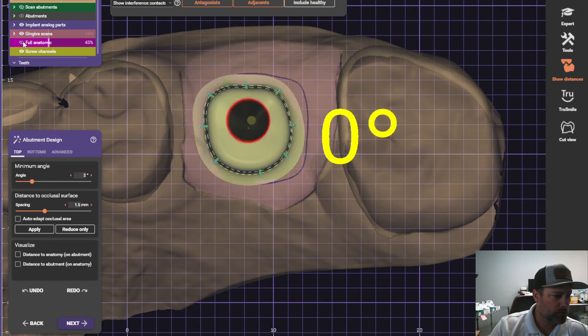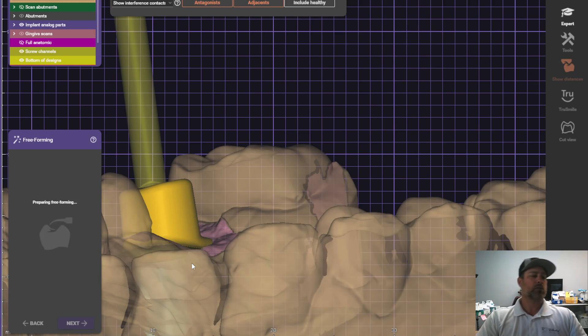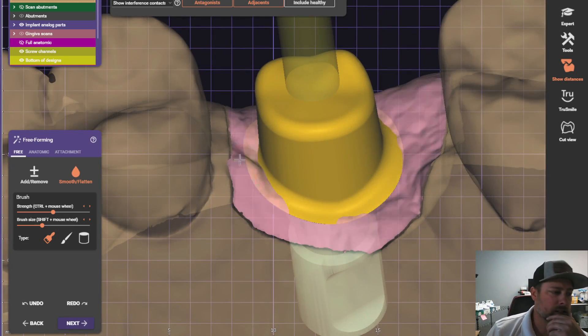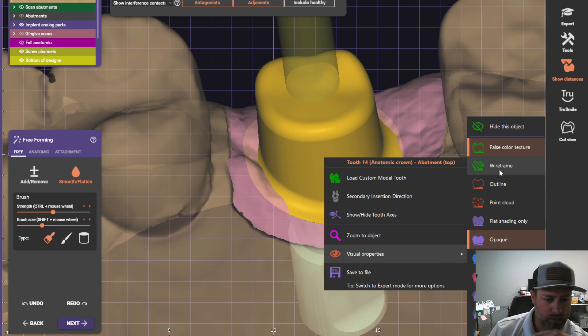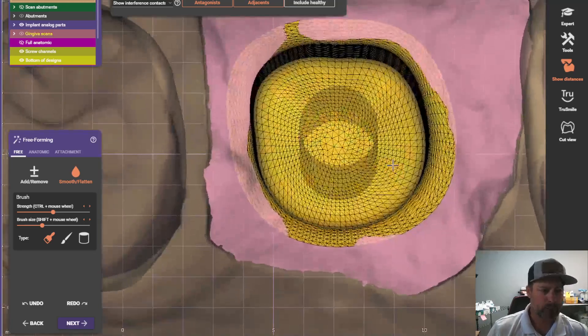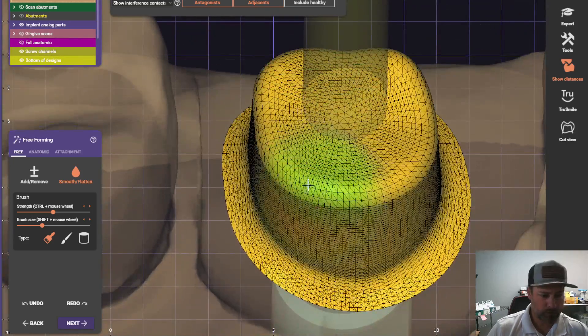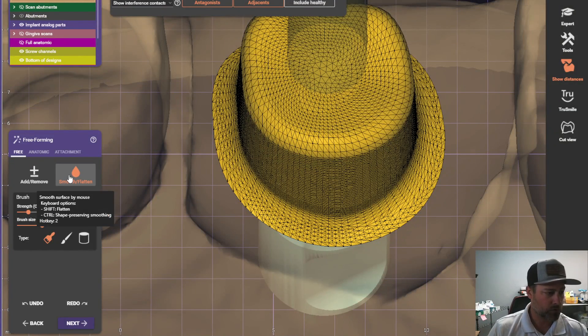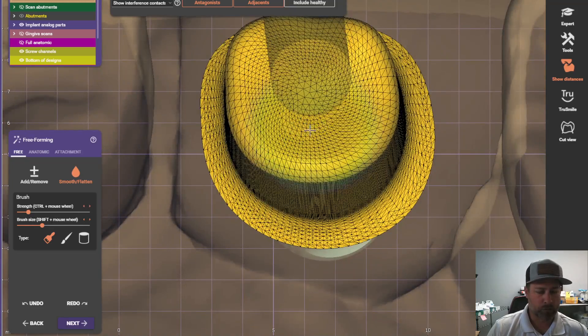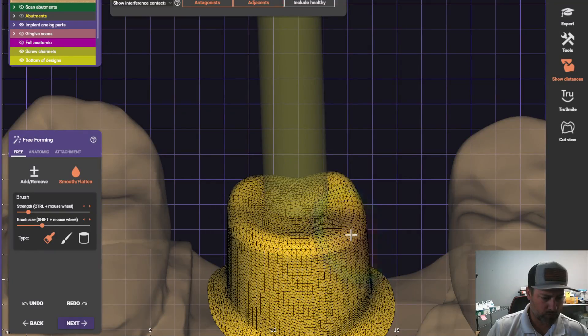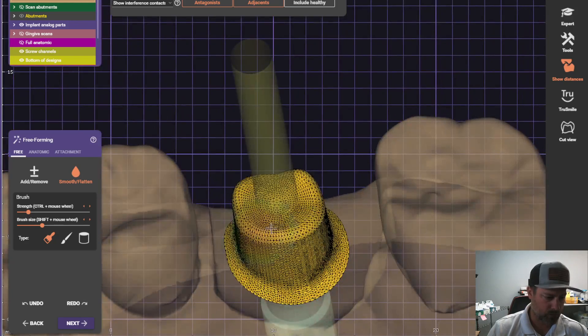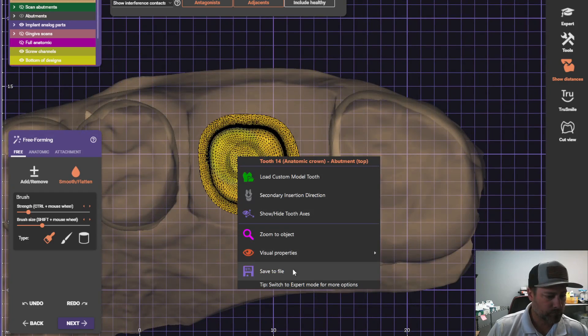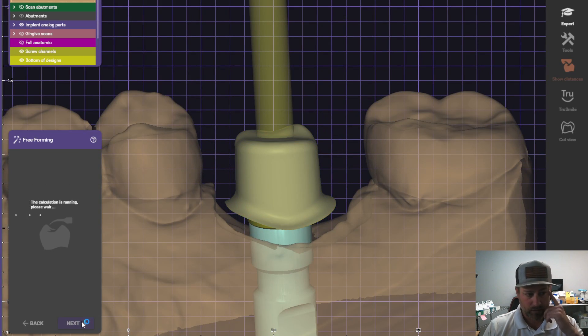Now we got our abutment and our crown. It's perfect. The last thing I do. Sometimes this is necessary. Sometimes it's not. You can right click and you can see the wireframe. Everything's pretty solid. There's nothing out of the ordinary. Nice and evenly distributed triangles here. If you need to fix these triangles, you can go to the smooth tool and then hold down control. It'll turn it purple. And then just fix the triangles. And these were already fine. So not really that big of a deal. We can go over the whole surface. And then that's it.